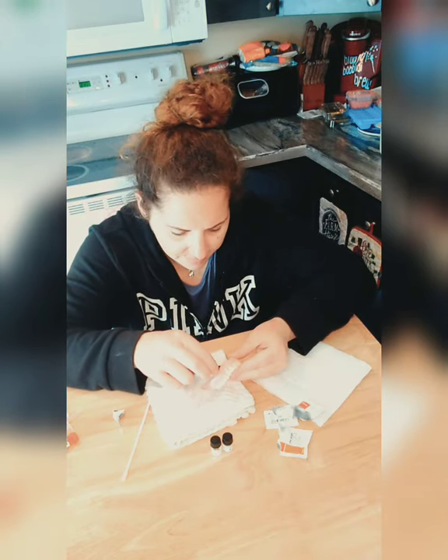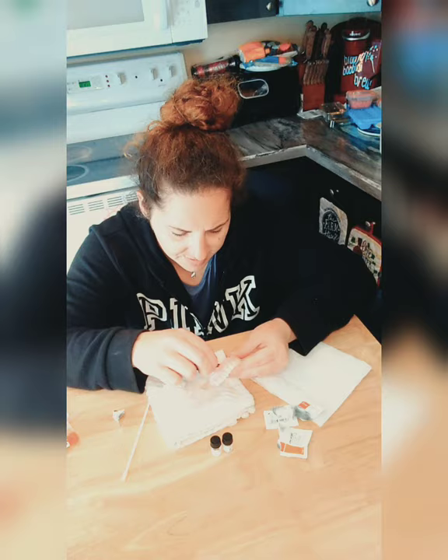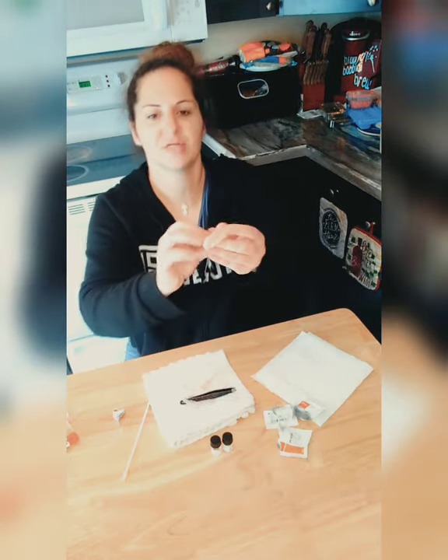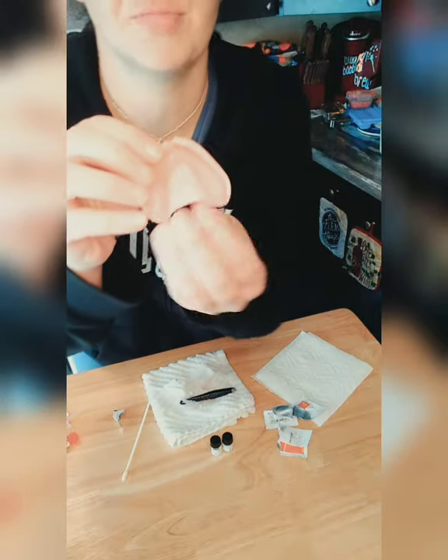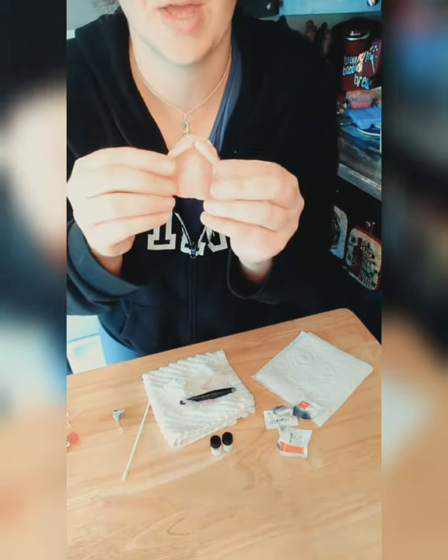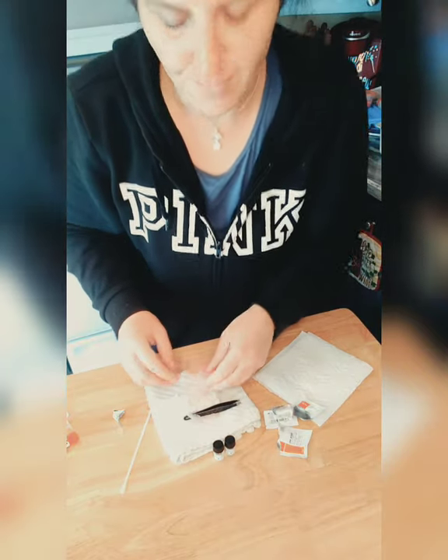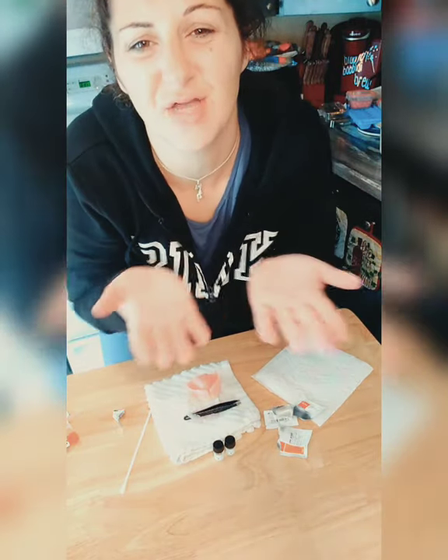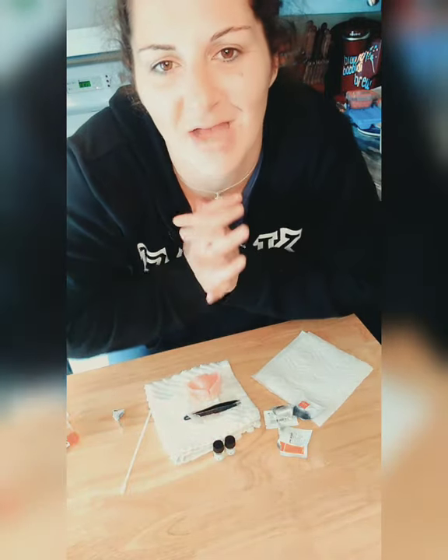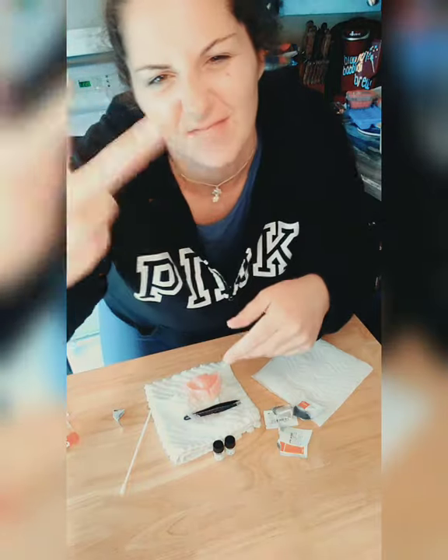It's just little bits I'm getting off right now. I'm trying not to drop my denture. Okay, it's all cleaned up — picking off the last bits. This is my permanent denture, Heather, please do not drop it! And we're going to do a soft reline next. Hopefully this helped you on how to do it, and the tricks with the tweezers and how to go about it. I love you guys, have a great day, God bless you, stay safe!